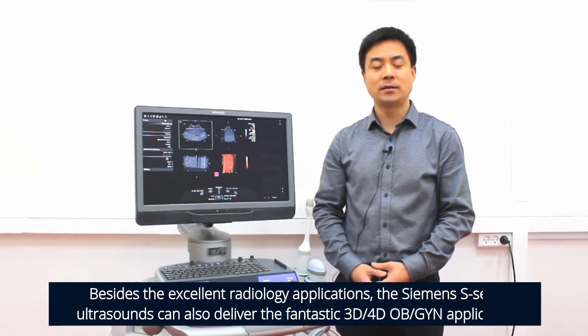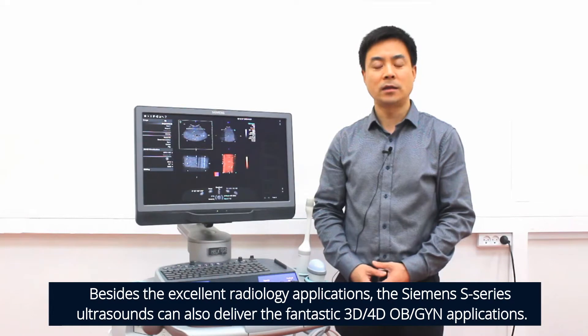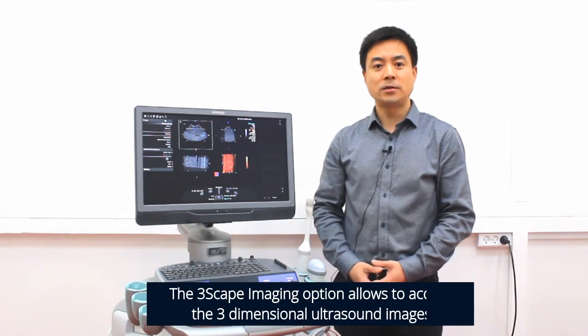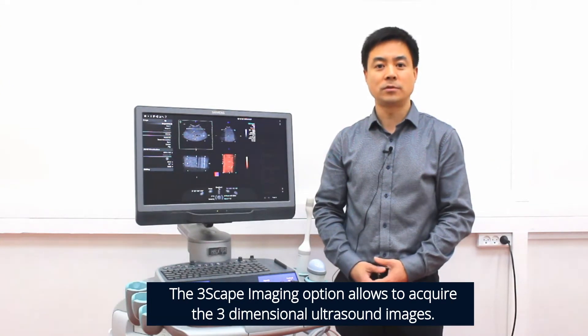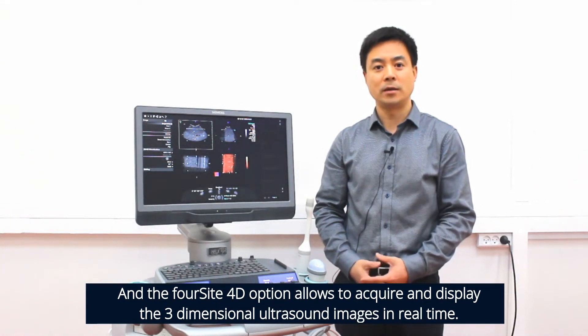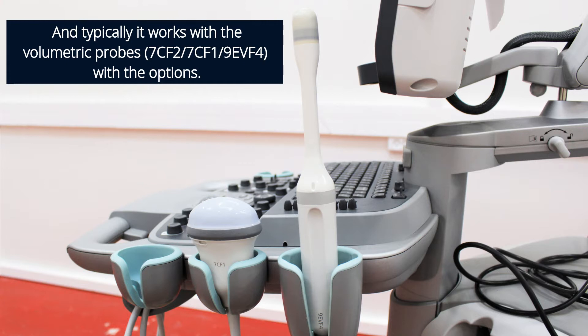Besides the excellent radiology applications, the Siemens S-Series ultrasound can also deliver fantastic 3D-4D applications. The 3Scape imaging option allows you to acquire three-dimensional ultrasound images, and the 4D option allows you to acquire and display three-dimensional ultrasound images in real-time. Typically it works with the volumetric probes with the corresponding options.